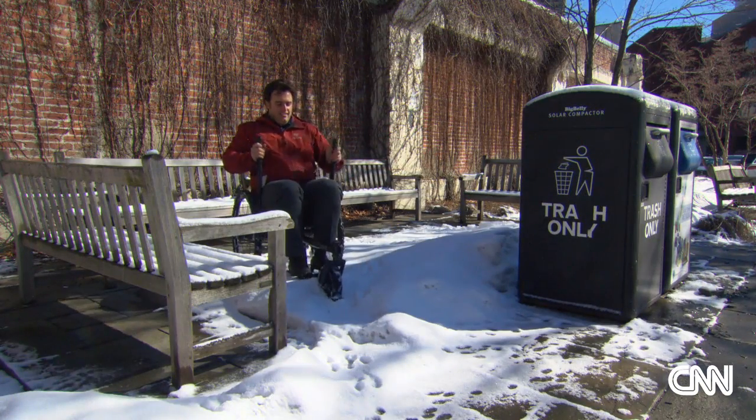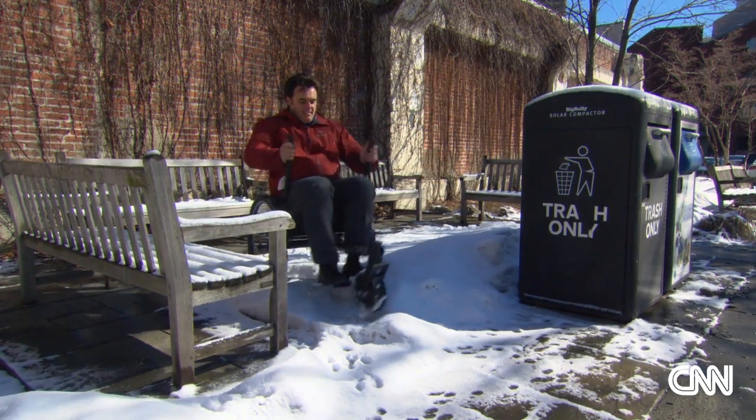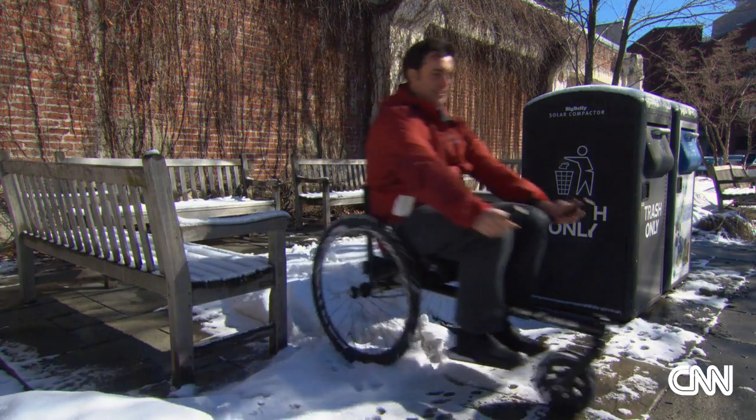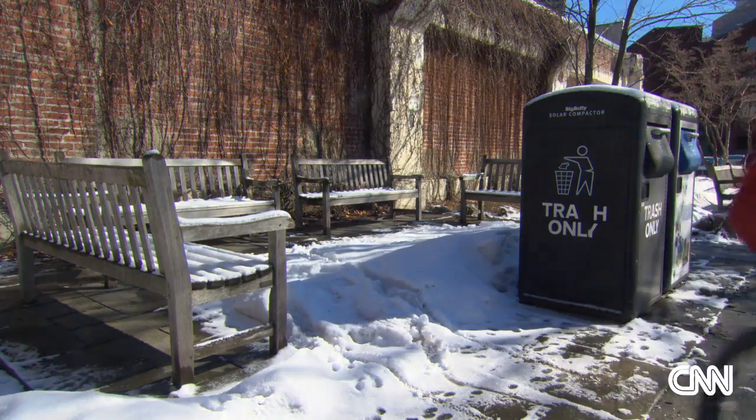Winter's goal was to create a wheelchair that could handle all sorts of terrain, could be built cheaply, and, very important, could be repaired easily using readily accessible parts. And so, the Leverage Freedom Chair was born.